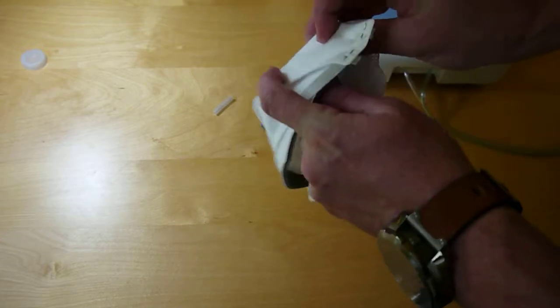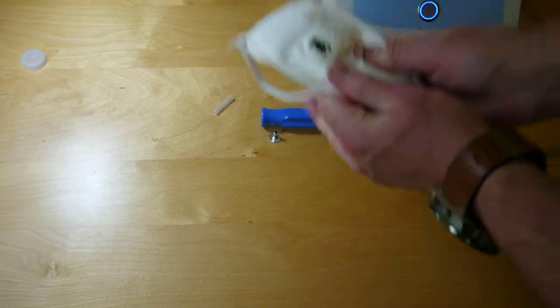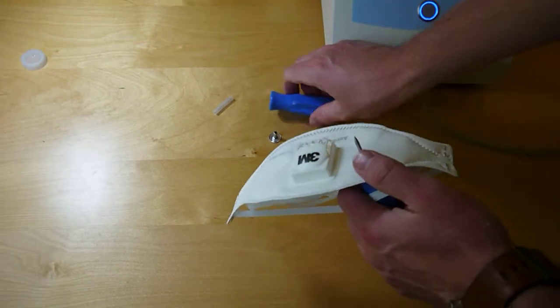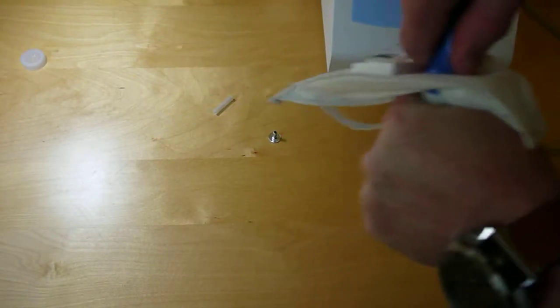We take this, have that through, put the other part on top and compress them together.